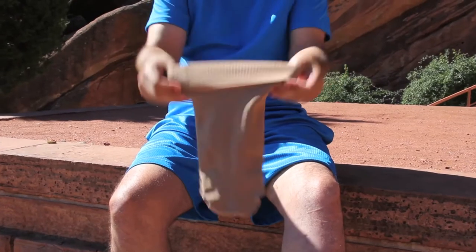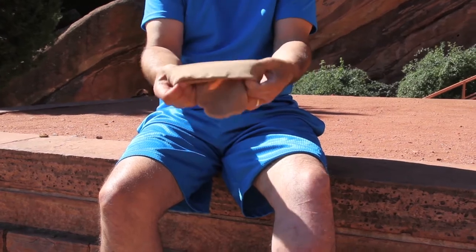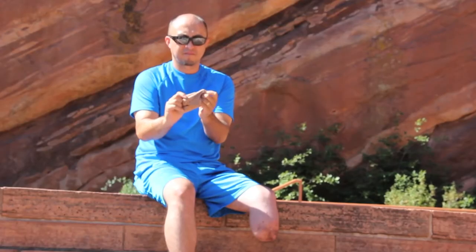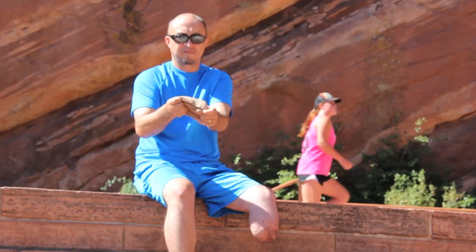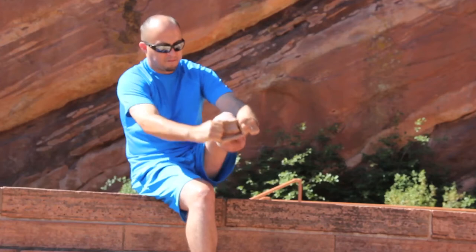To apply the shrinker, using both hands scrunch down the shrinker to the seam on the bottom and stretch the opening. The seam of the shrinker should be horizontal or side to side. A donning tube may be helpful as well. The shrinker should completely cover the knee and go on to the thigh.